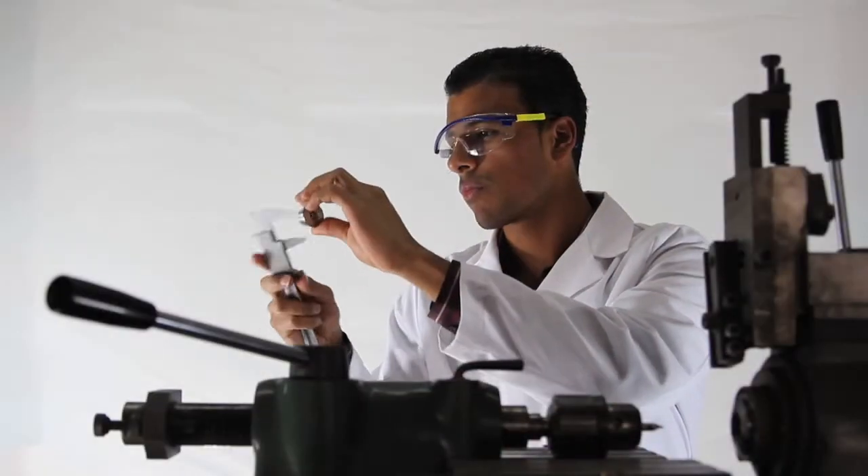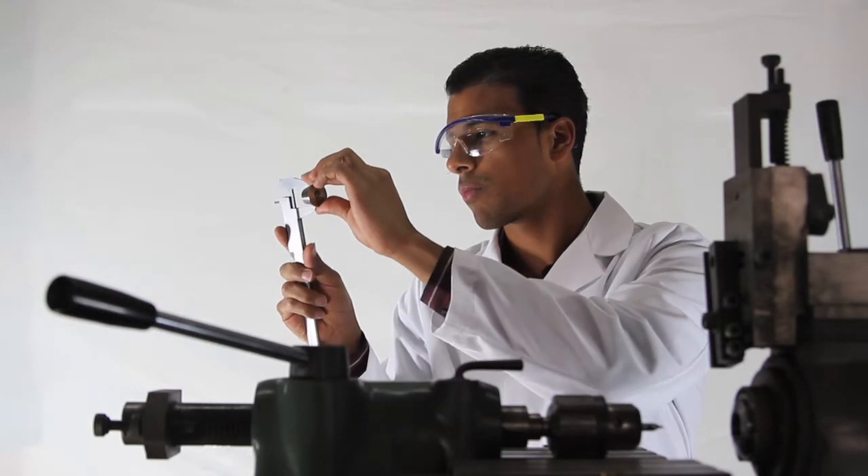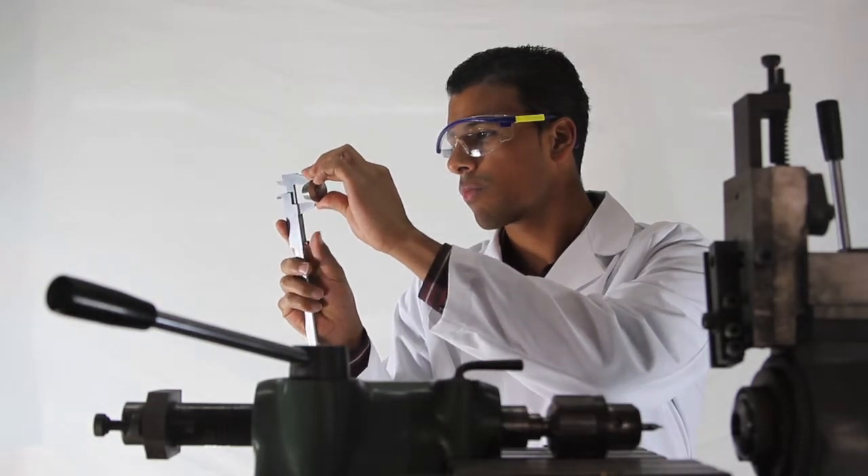Well, at MDF, that's something that we thrive upon. We never produce a new product without putting into it the innovative and creative features that MDF is really known for. When we looked into making a Sprague-type stethoscope, we really did our research and we spoke to Sprague enthusiasts and found out what they believed the weaknesses were in the original Sprague-Rapoport style stethoscope. We then took our proprietary and patented components and put them into our version of the classic Sprague-Rapoport style stethoscope, the MDF 767.